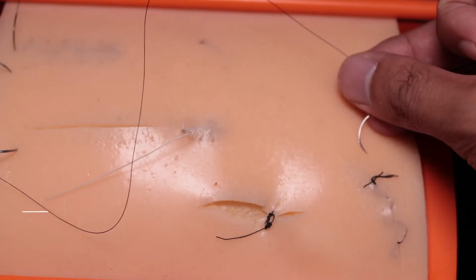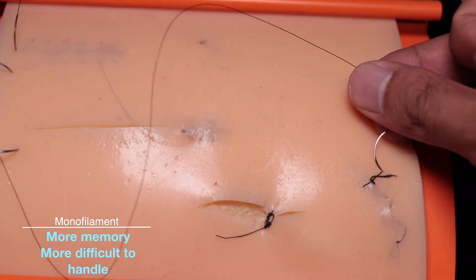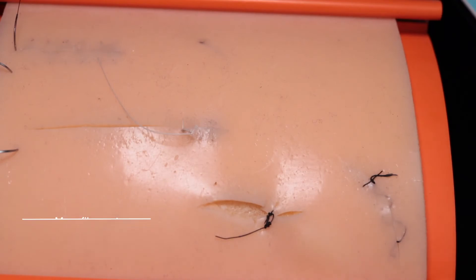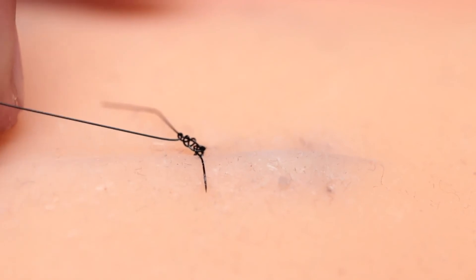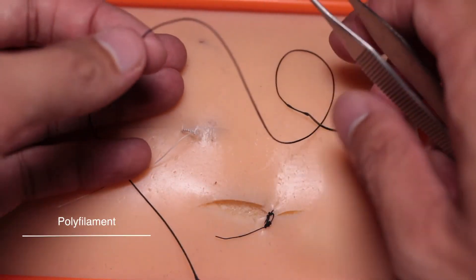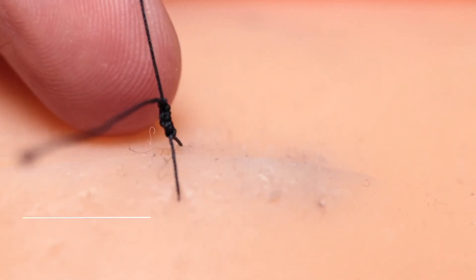Another aspect of comparing mono to polyfilament sutures is what we call memory. Memory is the tendency for a suture to return to its original position, making it harder to tie knots. As I'm demonstrating here, you can see that pulling on this nylon string makes it quickly return to its original position, making it harder to handle. This can be an issue when tying knots because the knots will not lay as flat as you'd like, and if you pull hard enough you could undo them. Polyfilaments generally have a lot less memory — you can pull them straight, making them easy to handle and tie knots that are flat, secure, and not prone to slipping.